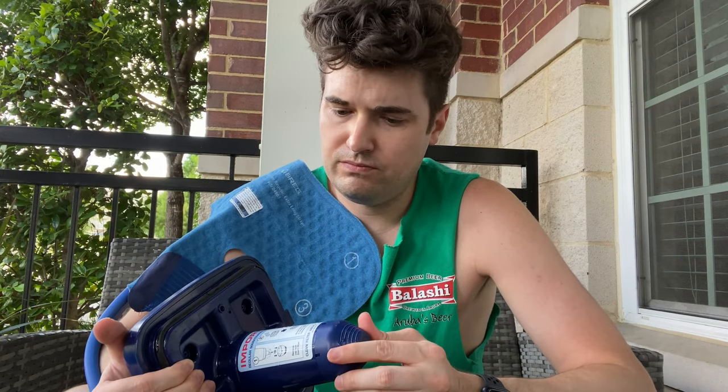It's really changed it. There's not any dripping or leaking — sometimes there's a little bit of condensation. But when you compare that to freezer bags that you have to keep rotating in and out, this thing is a lifesaver. It's a real lifesaver.